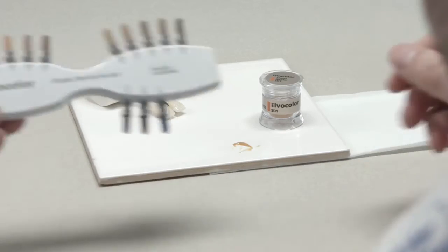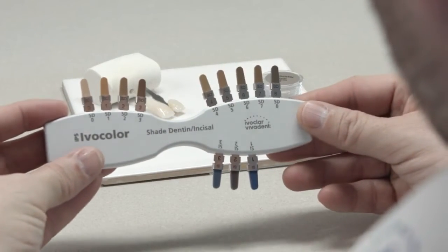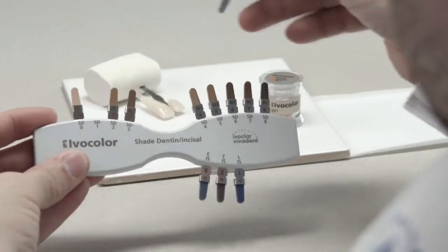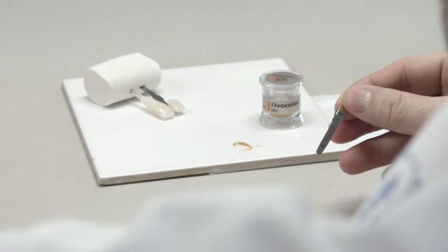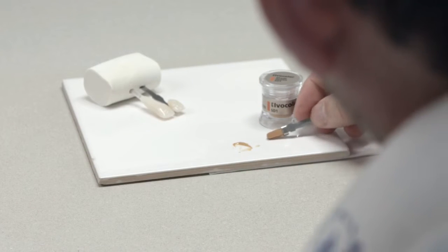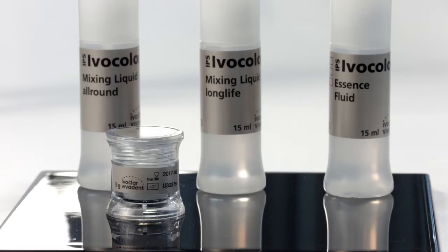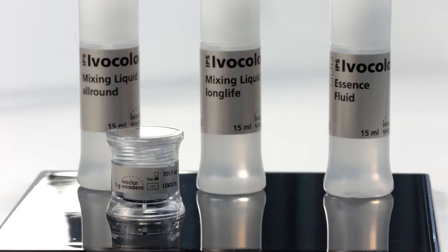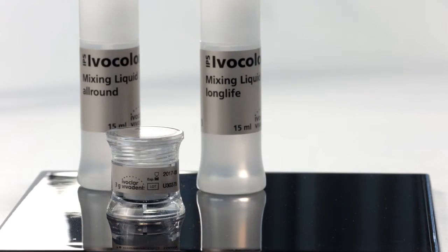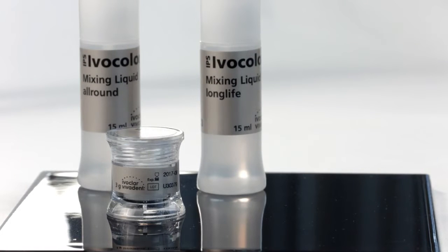Use the IPS Ivocolor Shade Materials to adjust or correct the tooth shade. With the 9-shade Dentin and 3-shade Incisal Colors, all A to D tooth shades can be excellently reproduced. To dilute the shade pastes, use the IPS Ivocolor Mixing Liquids, All Round and Long Life.